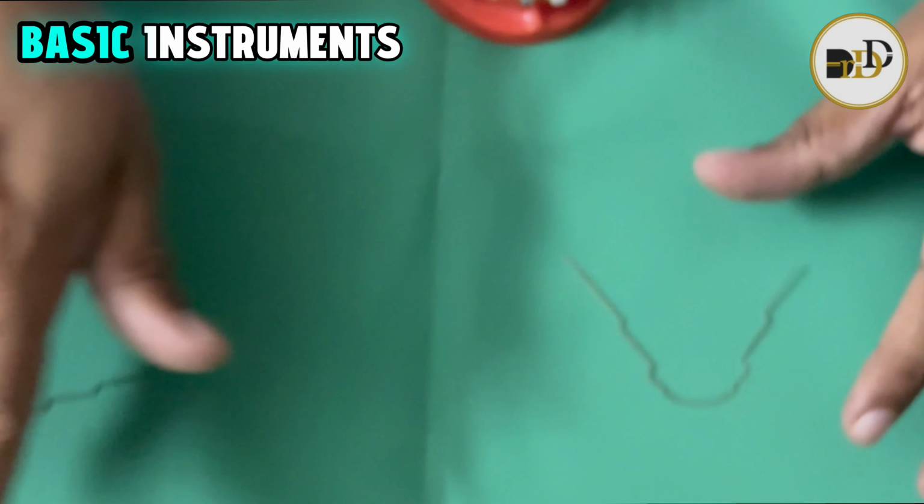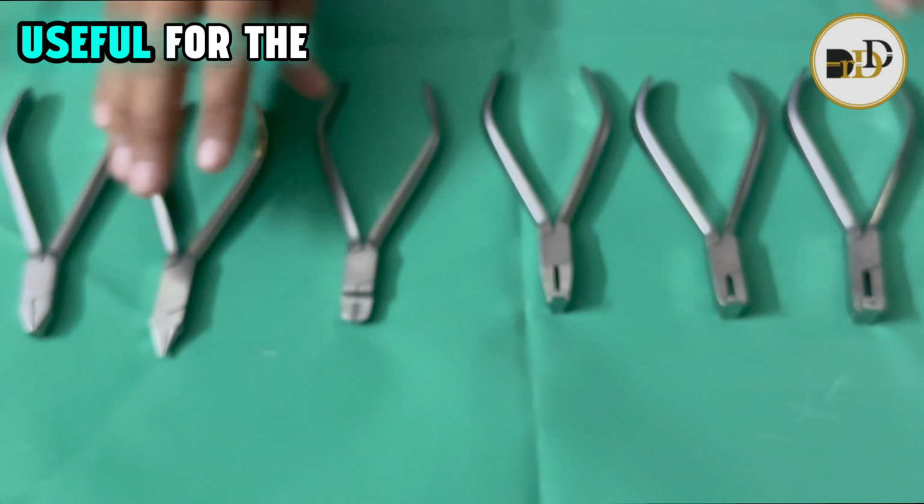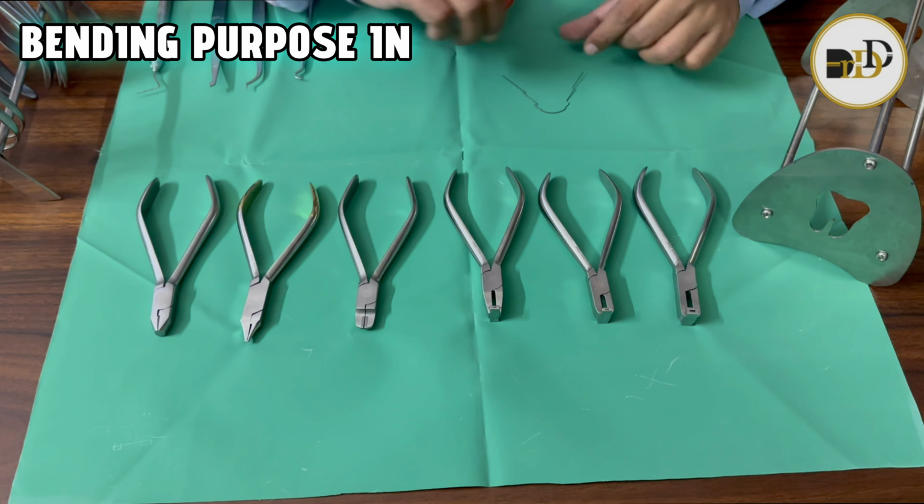So these are the basic instruments useful for bending purposes in lingual.